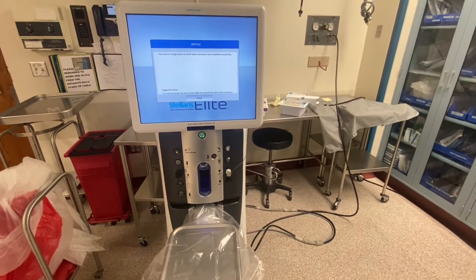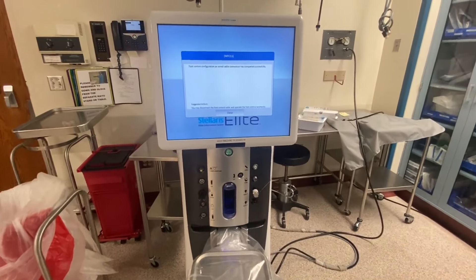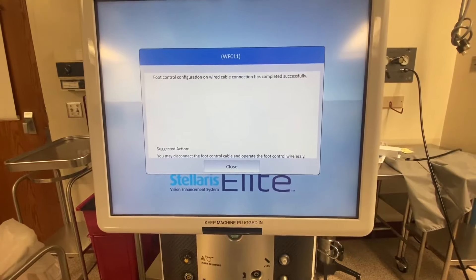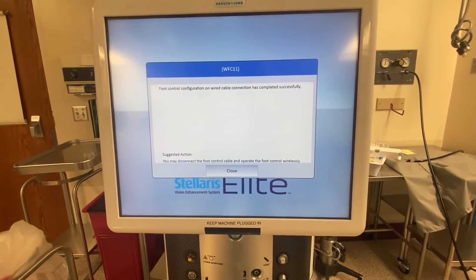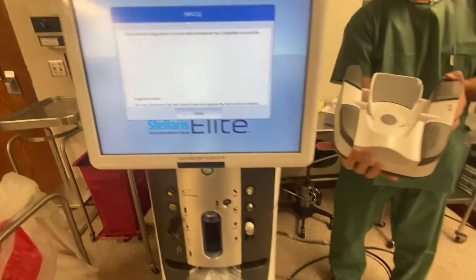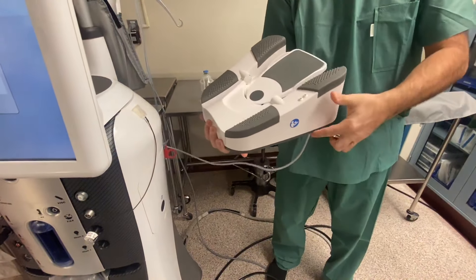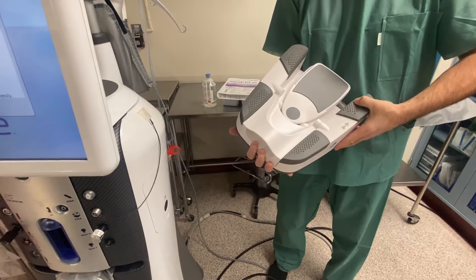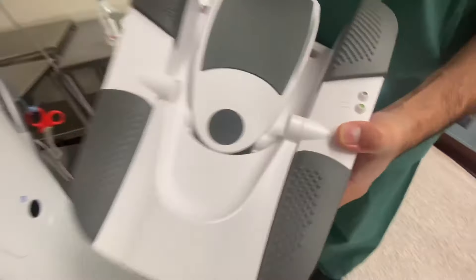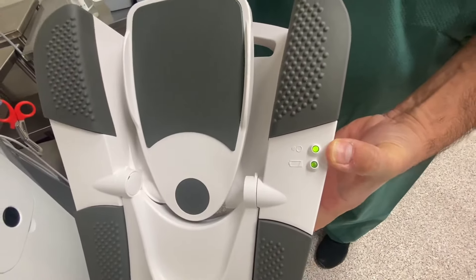Before turning the system on, we want to make sure that the foot pedal is wired. The system will boot up and then we'll see the WFC 11 message that says that foot control configuration on wired cable connection has completed successfully. That is the indication that it's safe to unplug the foot pedal from the system. Now we should unplug the cable and hold one of the four side buttons of the pedal for a second, which will initiate the wireless connection. Once this light turns solid, which can take up to a minute, we know that the foot pedal is synchronized wirelessly with the system.